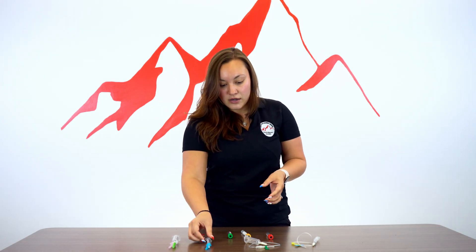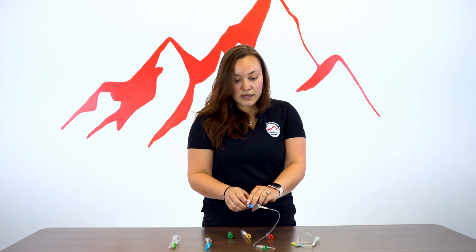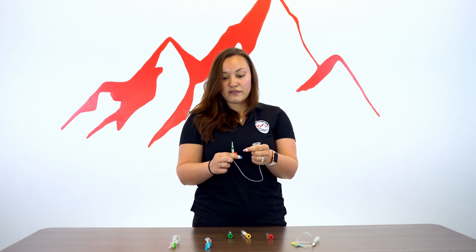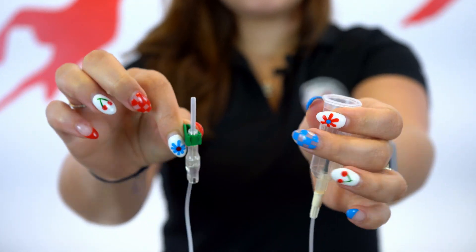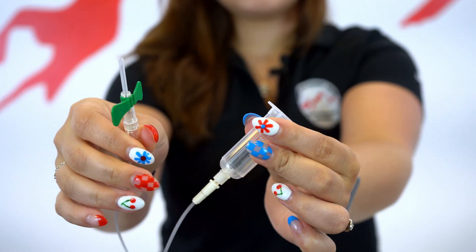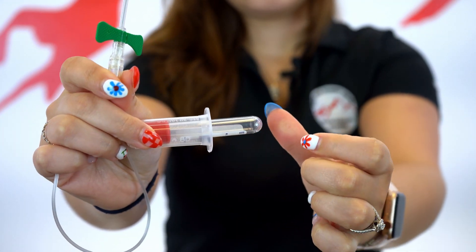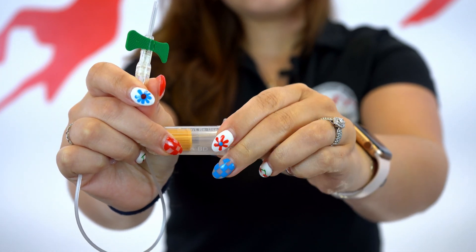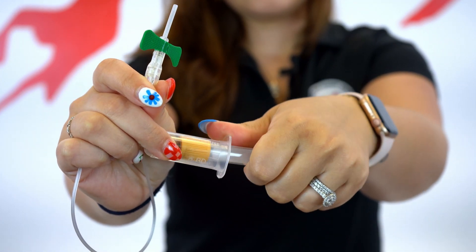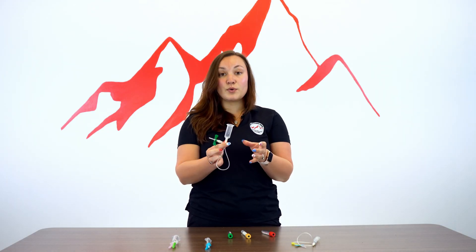We also have a butterfly needle, which allows for more control. This is the green butterfly needle — you can have more control by holding on to the wings. It also acts as an evacuated tube system where you place the needle into the patient and then pull the tubes in the order of draw, allowing for multiple tubes to be drawn at once.